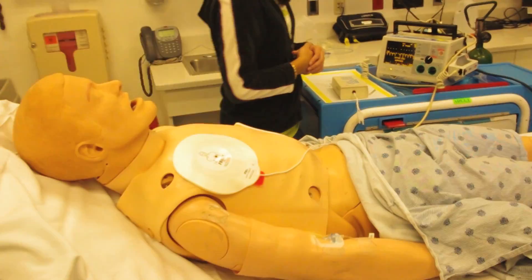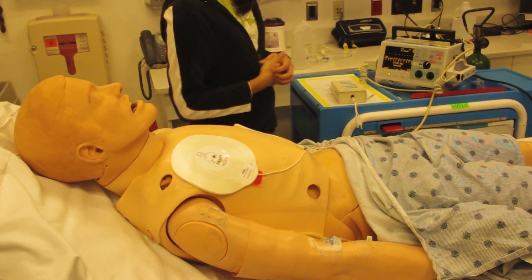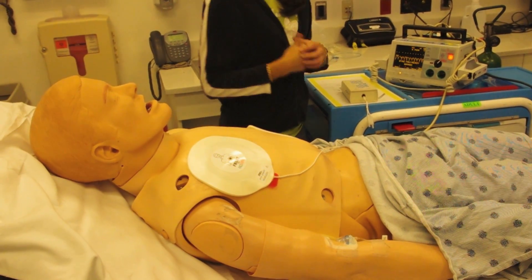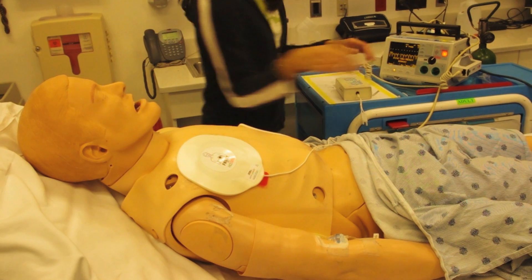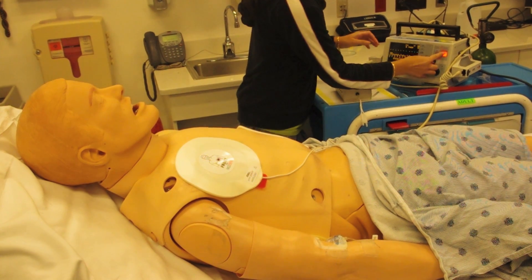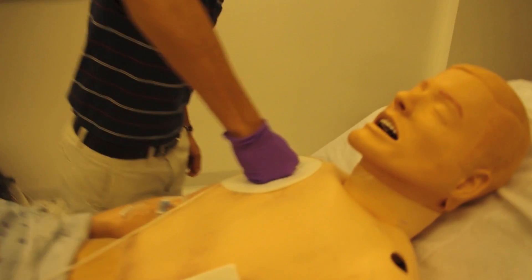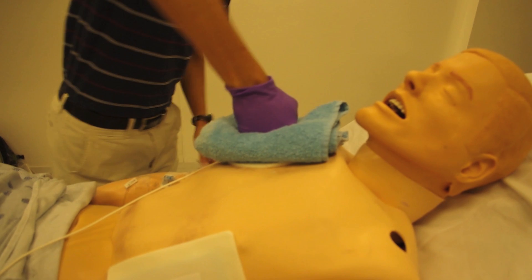Clinicians must make an immediate decision on what to do next. The problem is that their only real option is to increase the energy of the next shock. However, high-energy shocks result in painful burns and death of tissue for the patient. What else can be done? Currently, options are crude and inefficient.